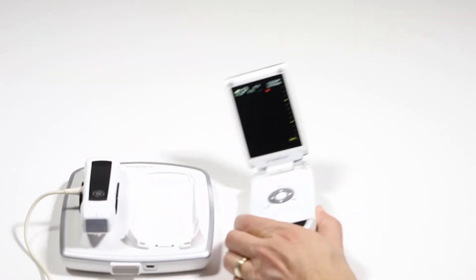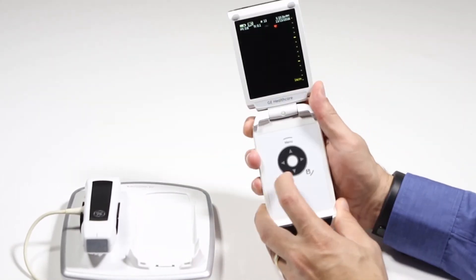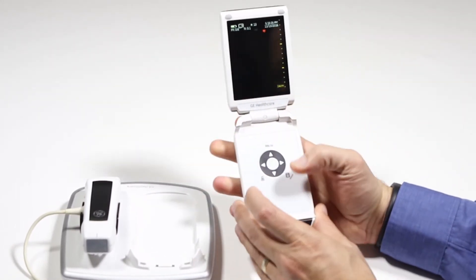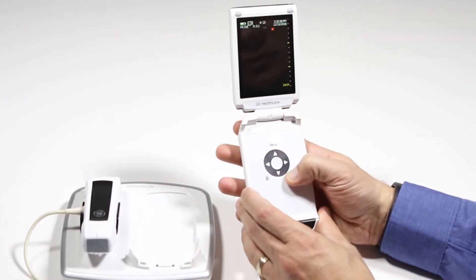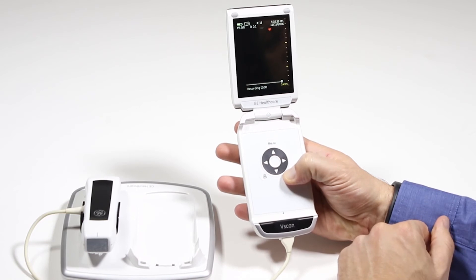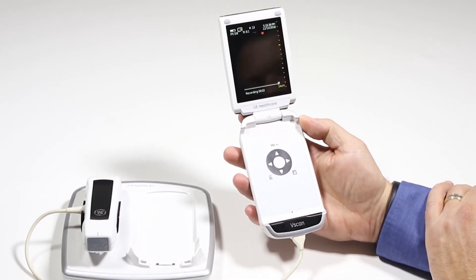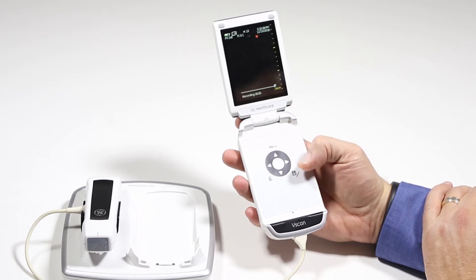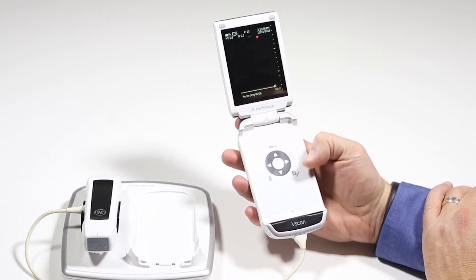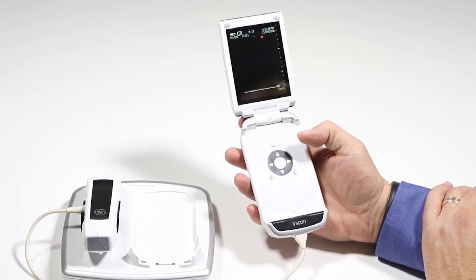The vScan also allows you to store voice notes. In a live or frozen image, just press and hold and it'll say recording — it automatically records your voice and saves up to 10 minutes. To stop recording, just hit save again.